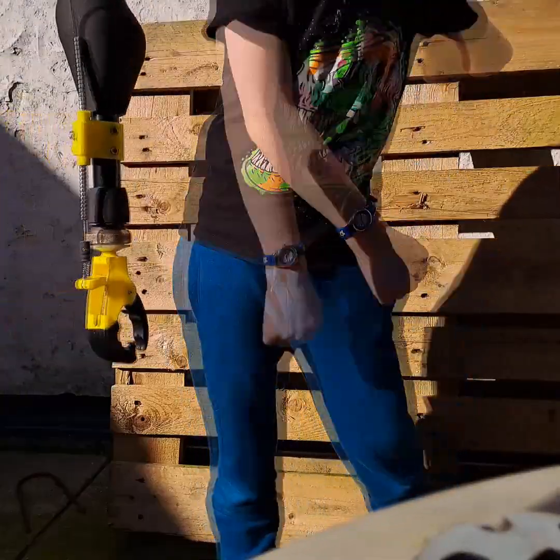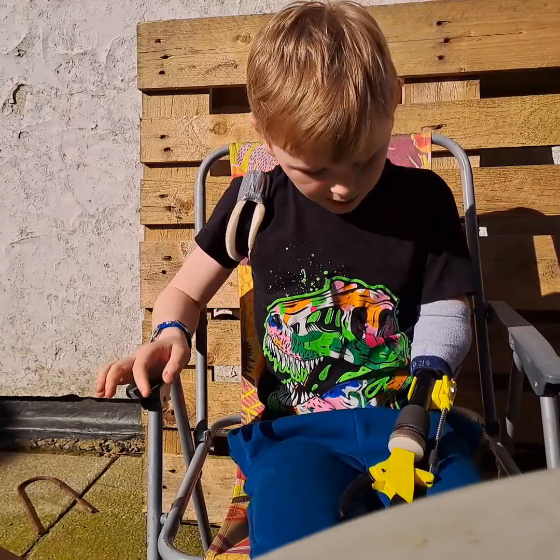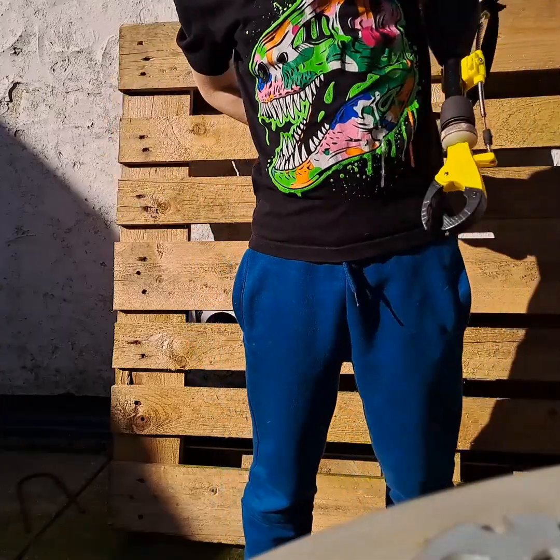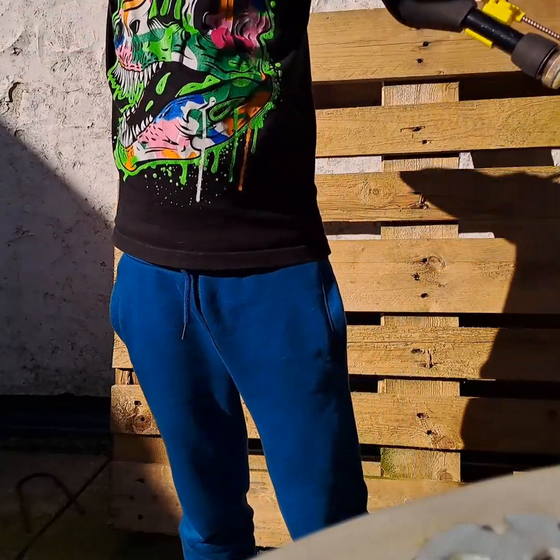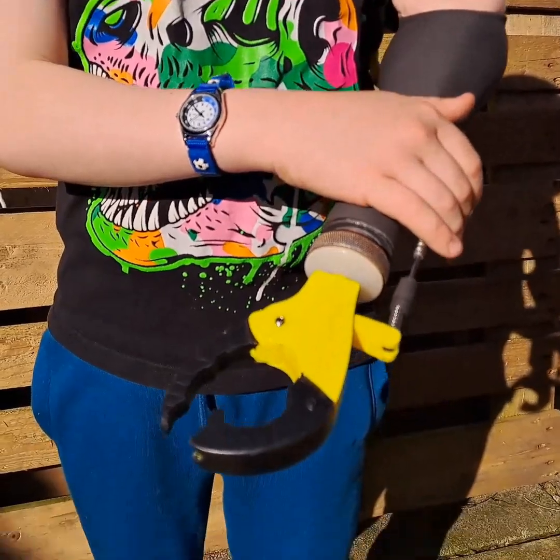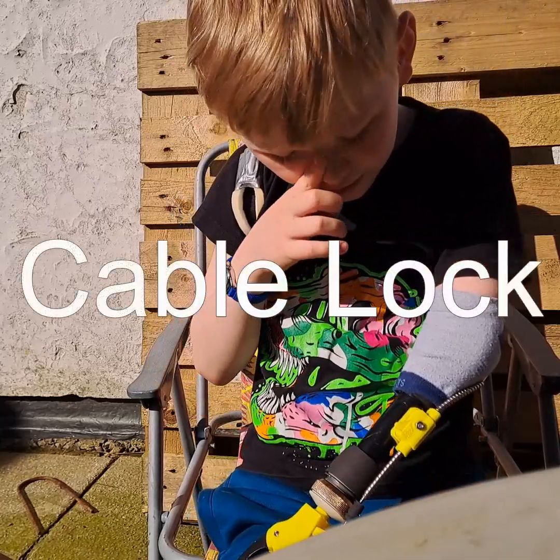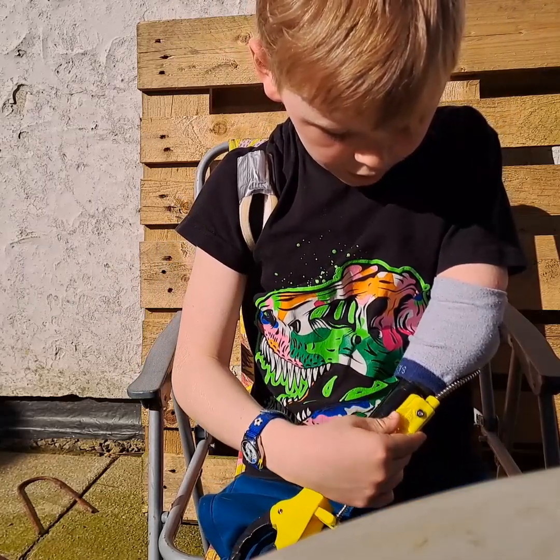This is a harness — it goes from here, over the back, down to here. If I click this lock right here, it'll stop. There's a mechanism in here, and then all you have to do is flip the switch.